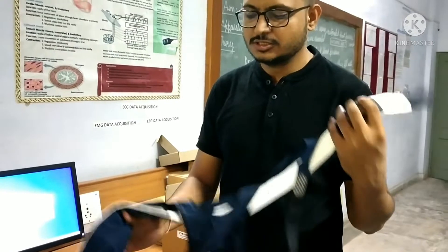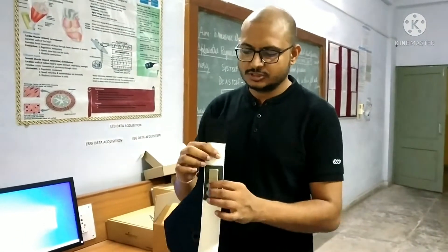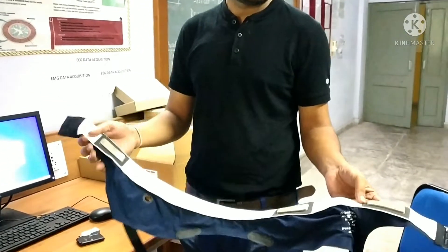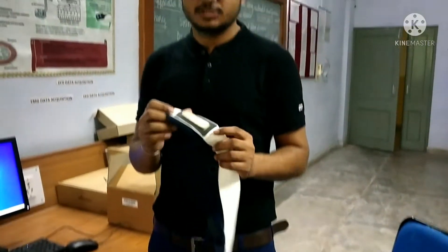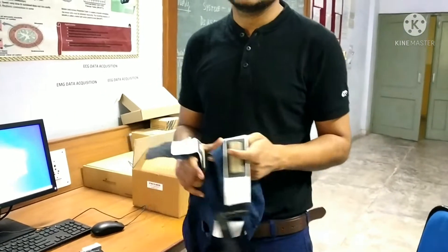This is a wireless device. It gets signals from fabric sensors which consist of various physiological parameters — obtaining signals such as ECG, respiration rate, heart rate, skin temperature, and three-axis accelerations.